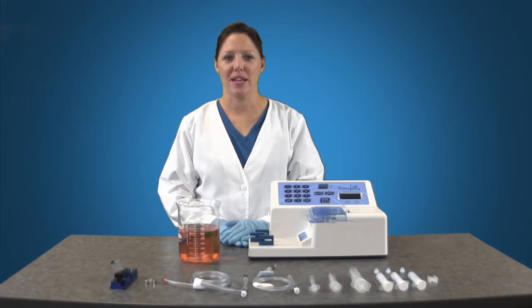You are now ready to set up your pump for filling. Before you begin, ensure that you have all of the necessary materials for the process.